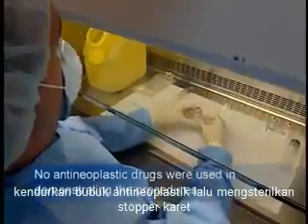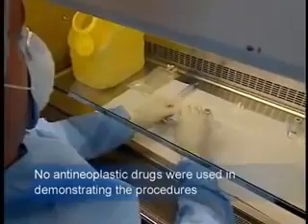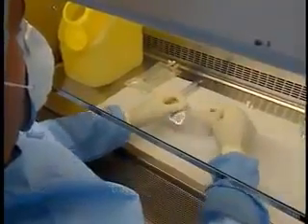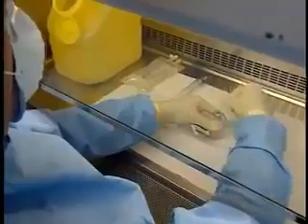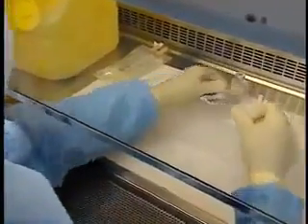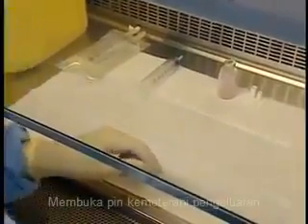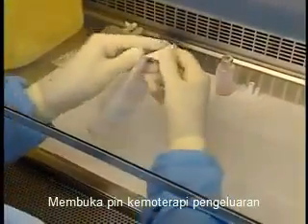Loosen the antineoplastic powder and then disinfect the stopper. Unwrap the chemotherapy dispensing pin.